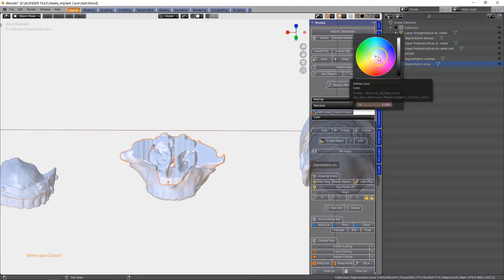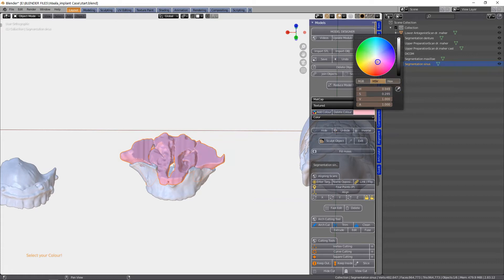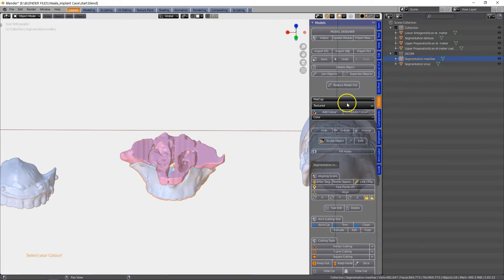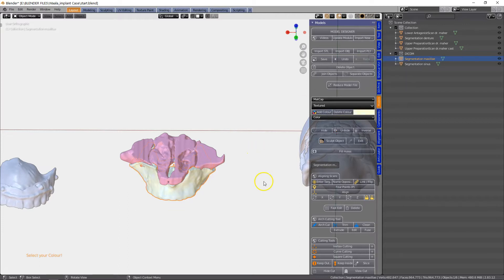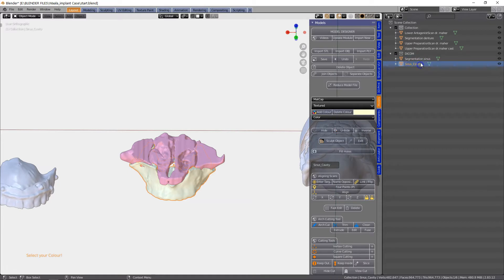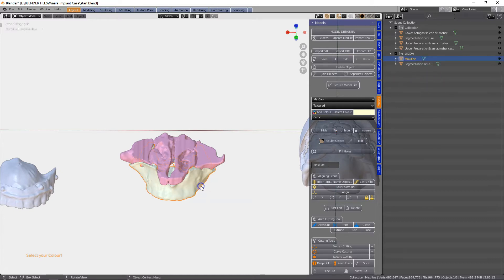I'm going to make this model a certain color — that's the sinus cavity, let's make it something like that. And then this one we're going to give a bone color or something like that. And then we're going to name these as well: sinus cavity, and then this one becomes the maxilla. And then we can find these objects super fast.